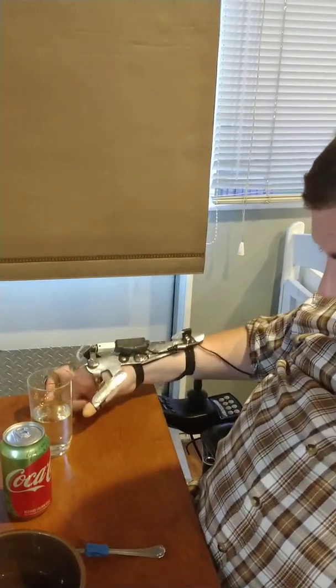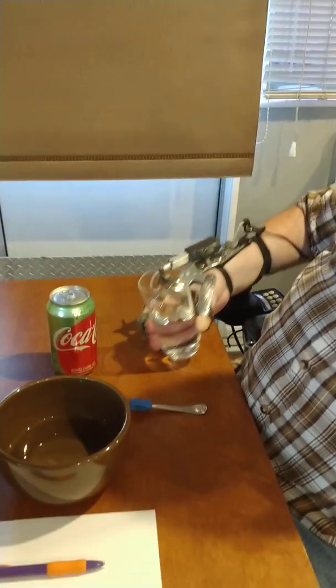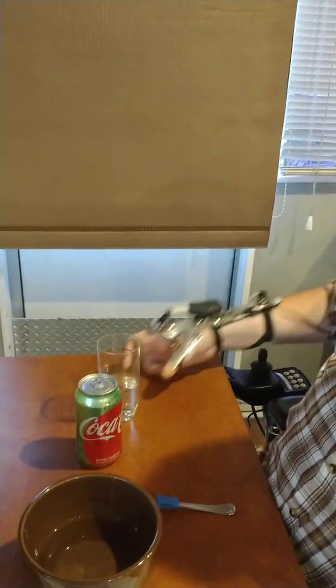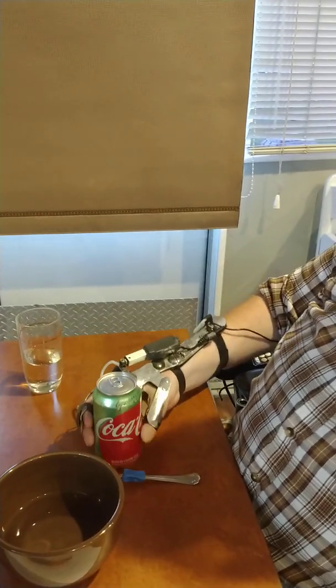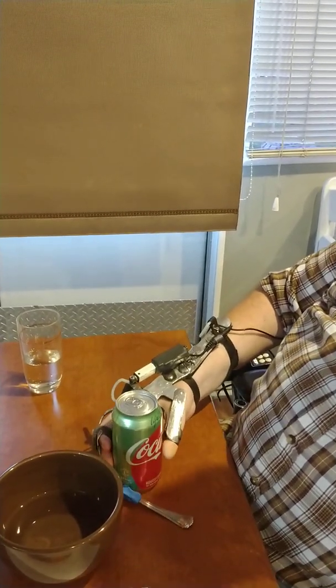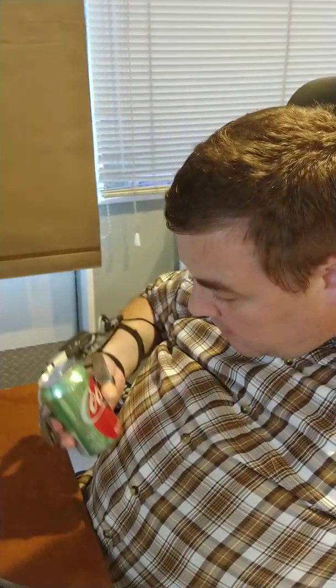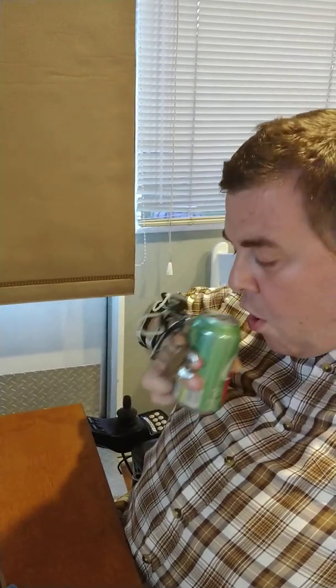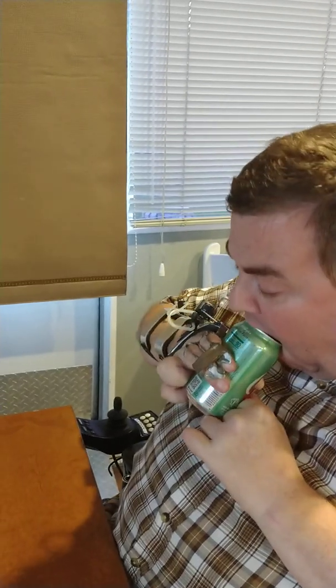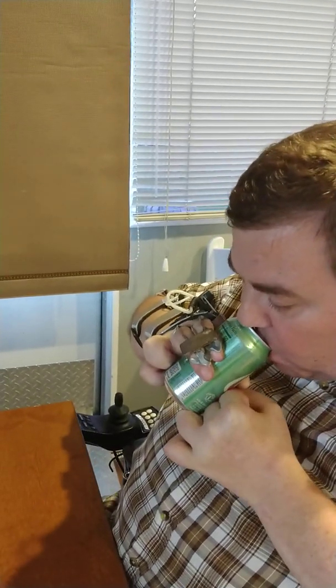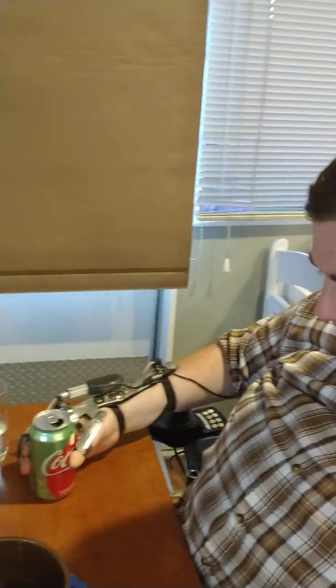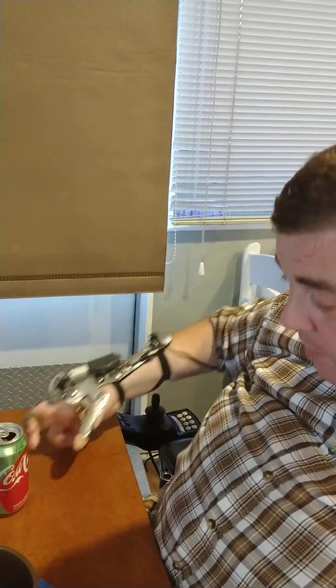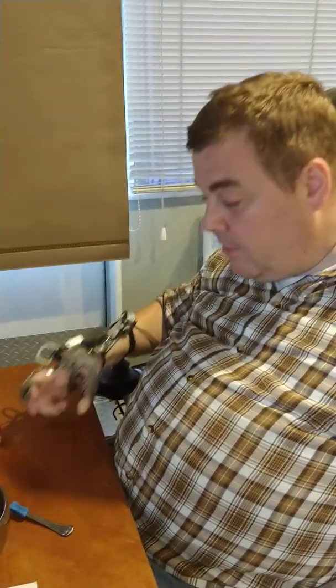But now I can get a good solid grasp on that glass of water. Drink. Set it back down. Similarly with the soda, I can get a good natural grasp on that. Pushing my hand in slightly more, that's not going anywhere. I can drink that. I can actually open it with my teeth. And if I squeeze it in a little more, I'll crush the sides of the can. But that's about the limit. We want the grasp to be as strong as possible without causing damage to the fingers.